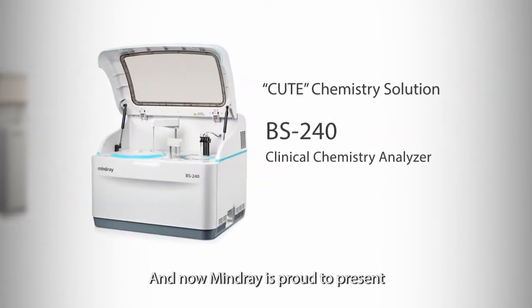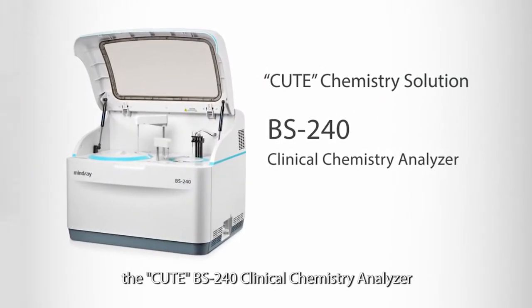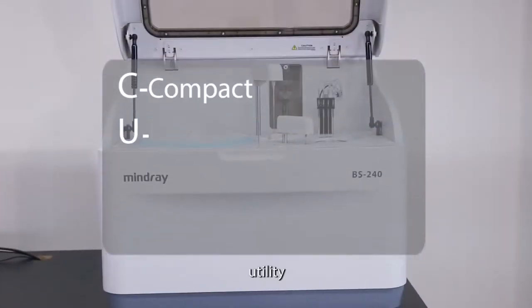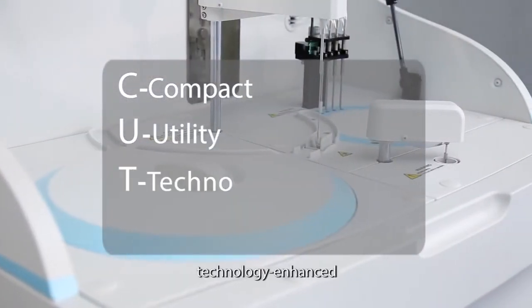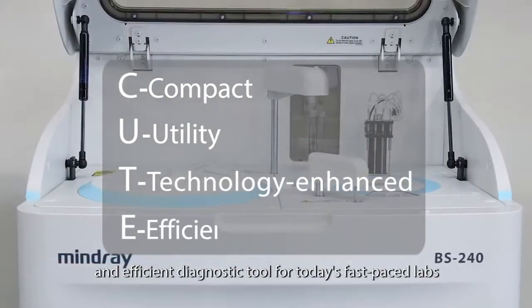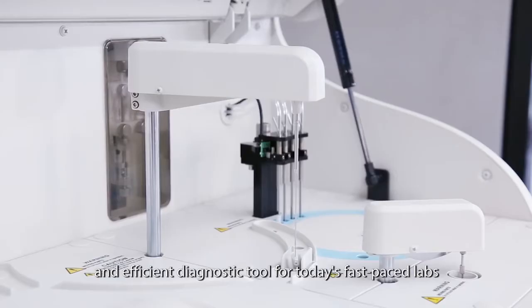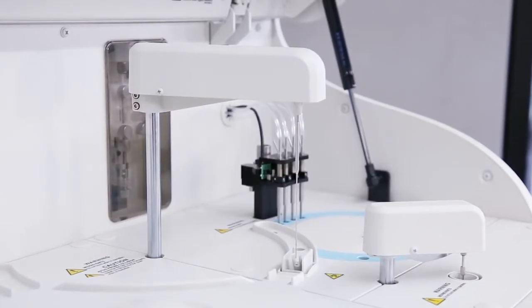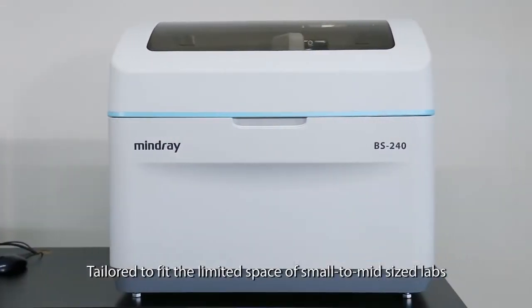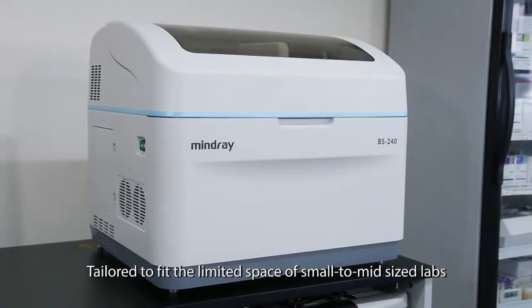Mindray is proud to present the cute BS240 Clinical Chemistry Analyzer. A compact, utility, technology-enhanced, and efficient diagnostic tool for today's fast-paced labs, tailored to fit the limited space of small to mid-sized labs.